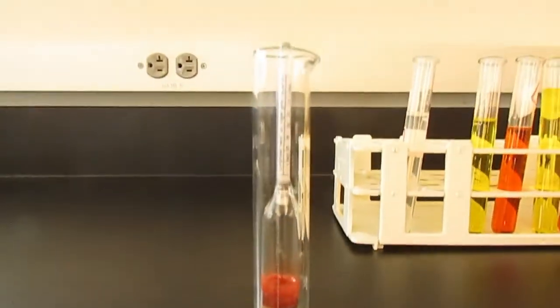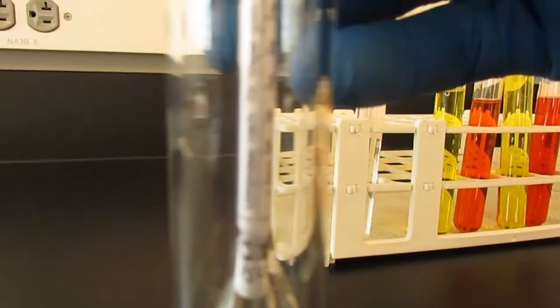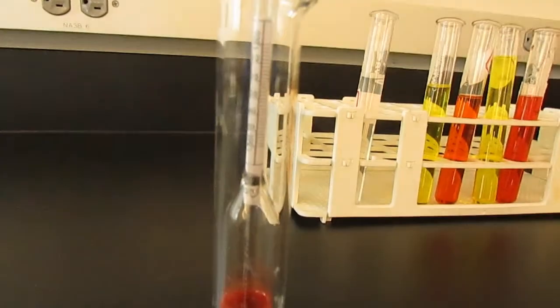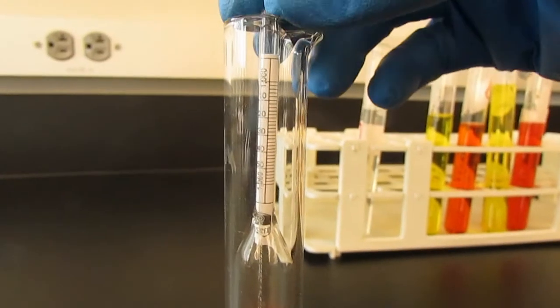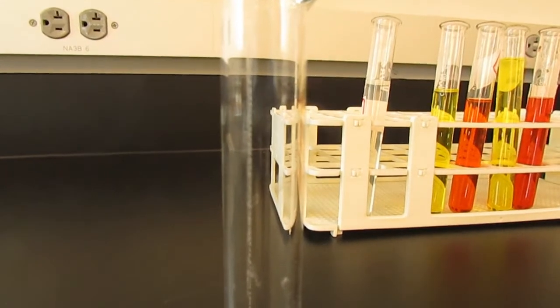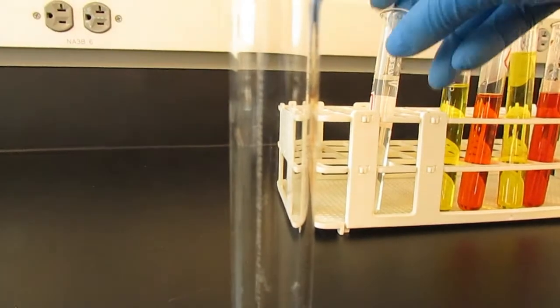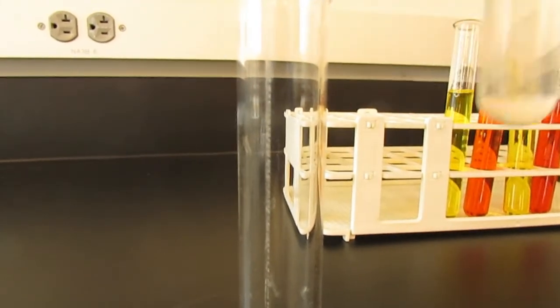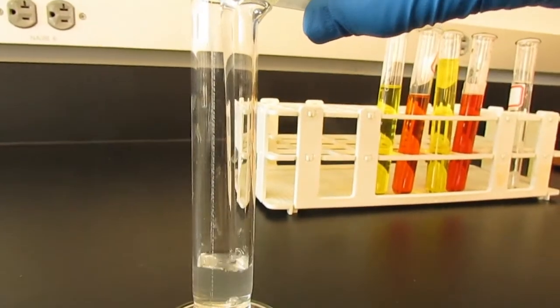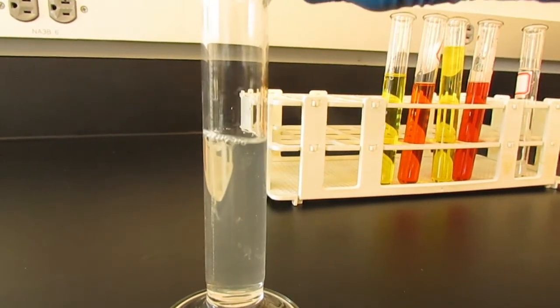This here is the hydrometer. If we look closely, we can see that there are a series of numbers on this float inside the hydrometer. In order to take this measurement, we are going to remove the float and put it somewhere safe. We take our first sample, sample A of urine, and fill the hydrometer until it's about 2/3 of the way full.